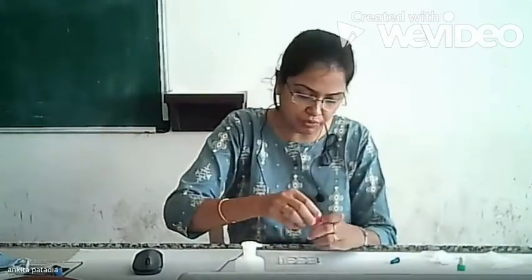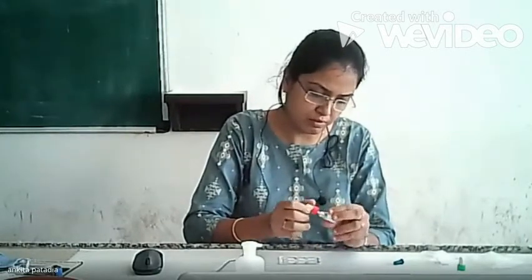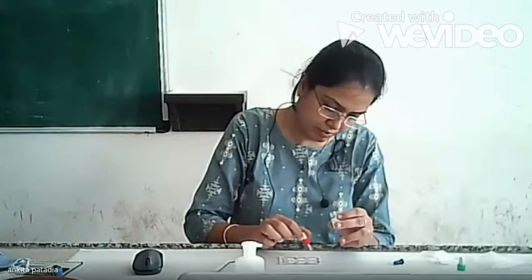We are already having our positive sample over here. Test sample is positive. So in 1:1, 1 drop sample has been added in 1:1 circle.